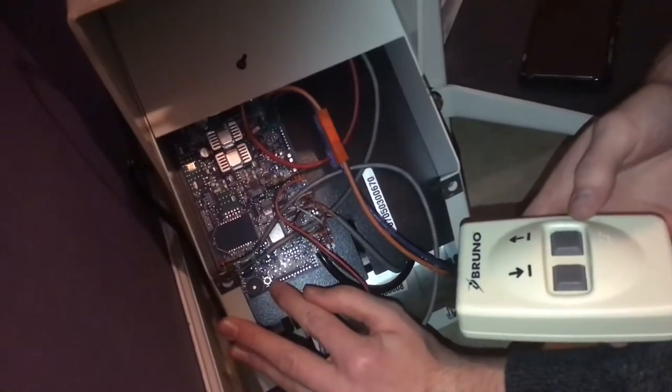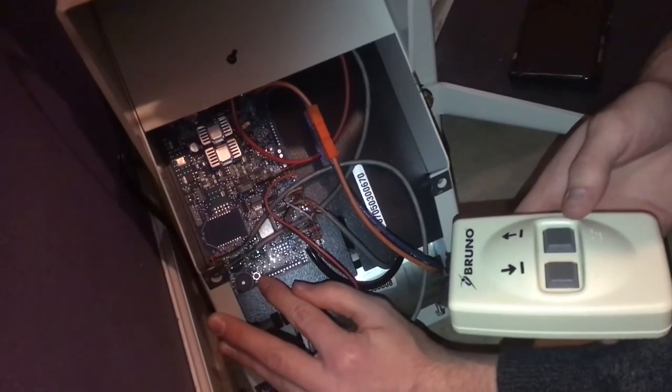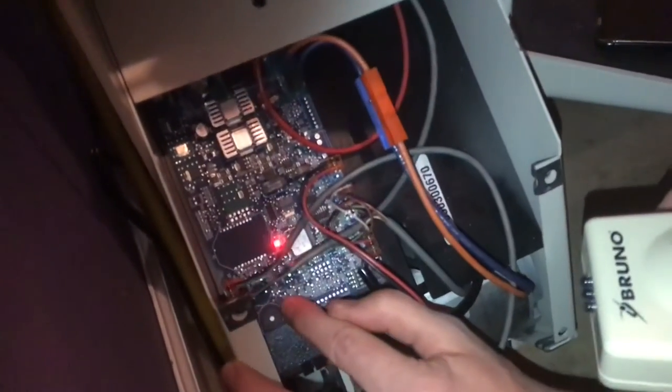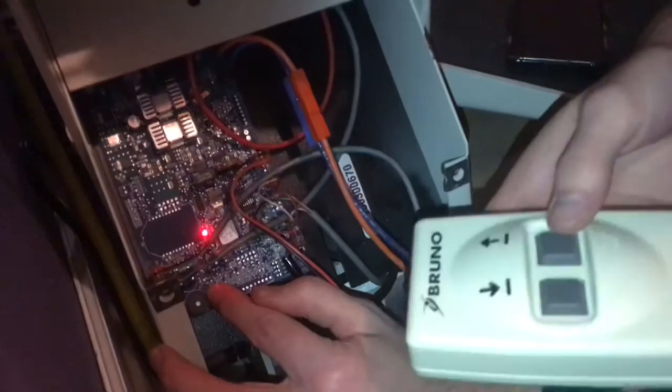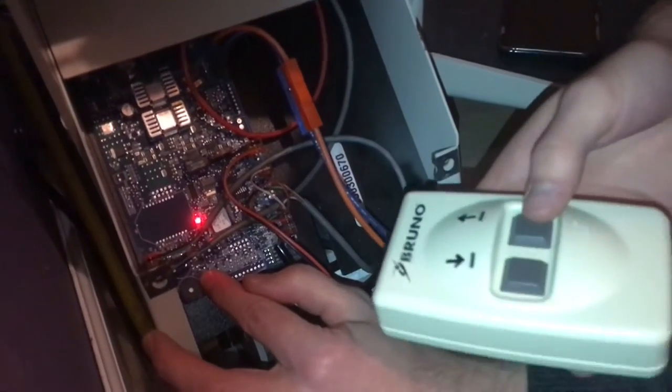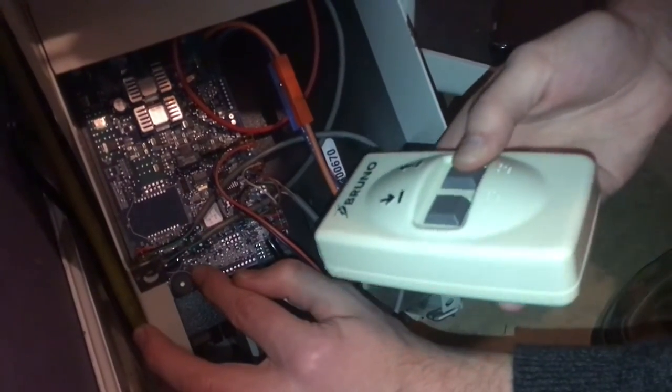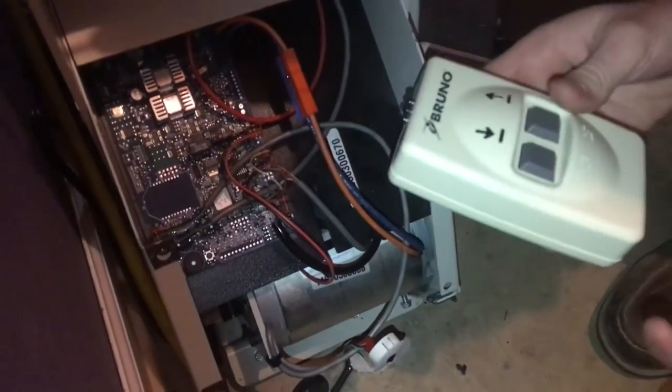There's a switch right here on the circuit board. It's a red switch at the bottom. You hold that down and that LED is going to turn on. Then push one of the buttons on the remote. That light will turn off. Just let go of everything.